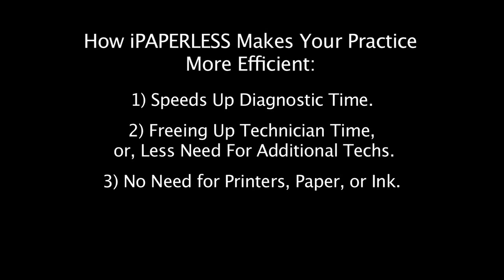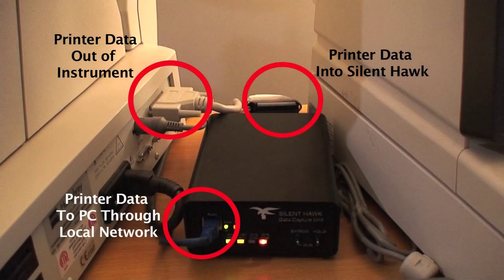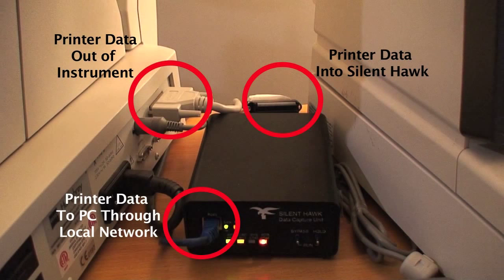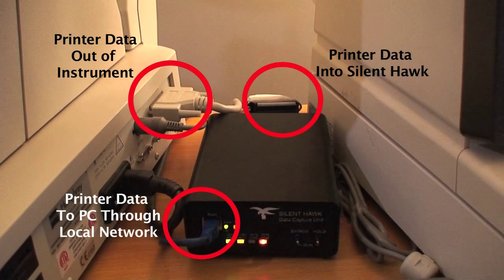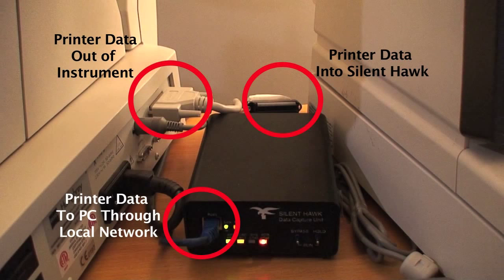Of course, iPaperless will communicate with all the new instruments. But the uniqueness of iPaperless is that you do not have the expense of having to replace your old or automated instruments. This is because the SilentHawk boxes can obtain the printer data from legacy parallel and RS-232 ports. In other words, iPaperless can even digitize your older instruments that have only printer output and no networking capabilities.